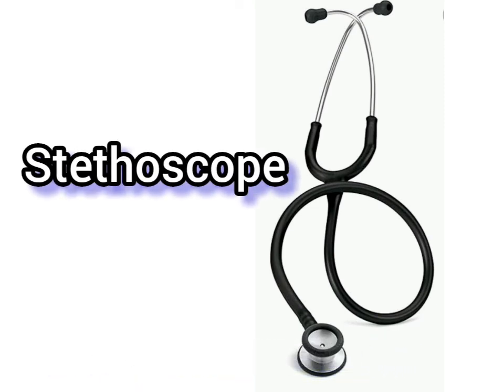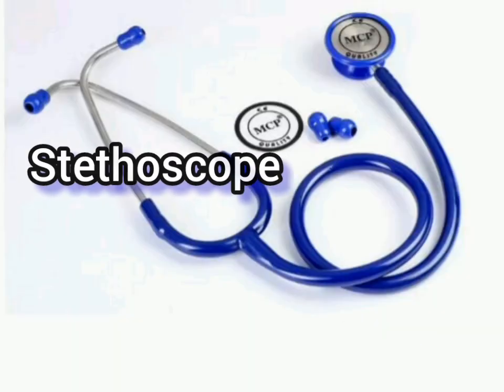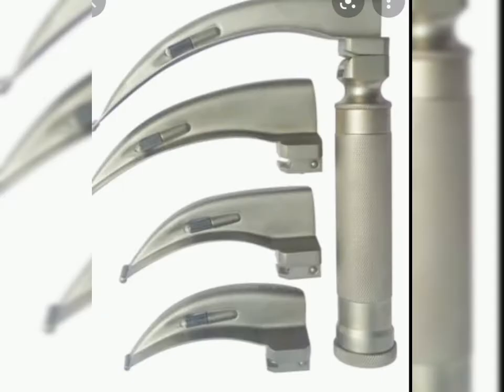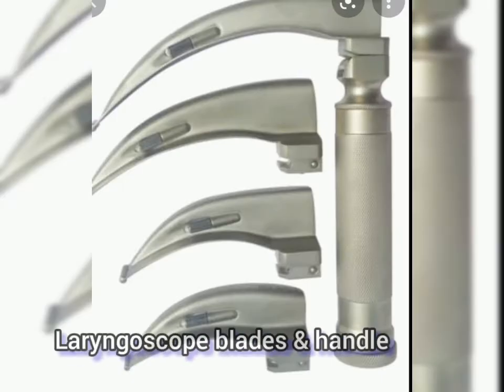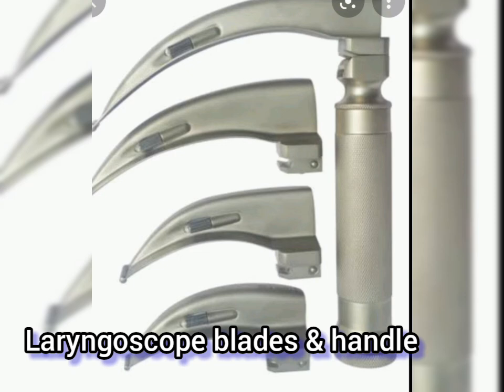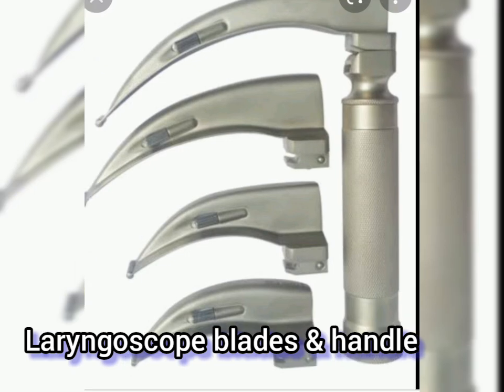Next, the stethoscope — using the stethoscope, a doctor can easily know what is happening with the patient. The laryngoscope blade is very useful at the time of intubation of a patient.